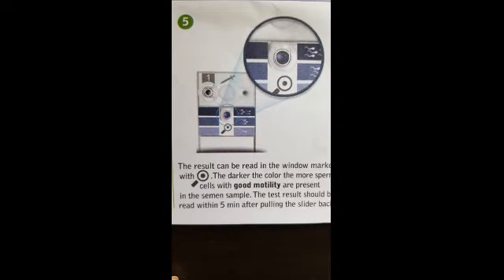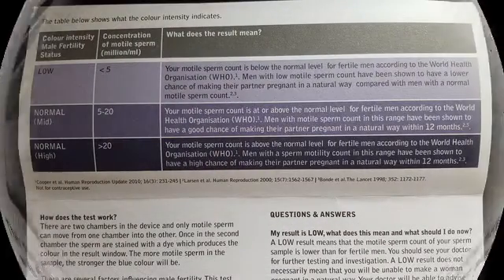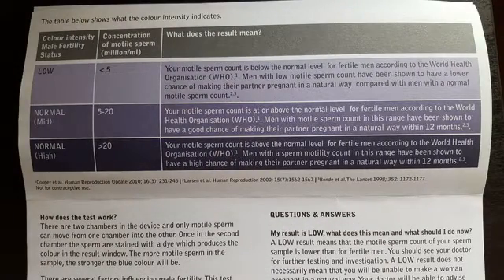After 30 minutes, pull back the slider and read the result. It's very important that you time this accurately using either your watch or a phone to time the 30 minutes. The colour in the well now indicates your result, so you compare this to the colour on the information sheet provided.